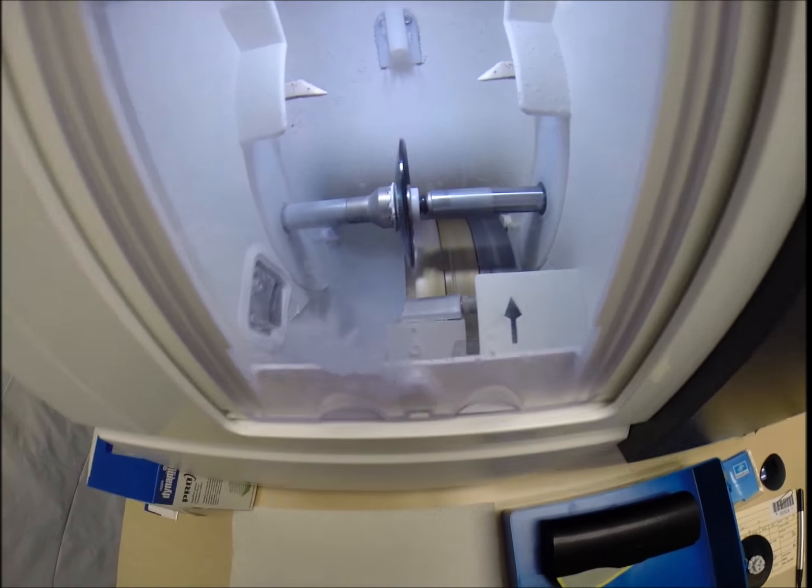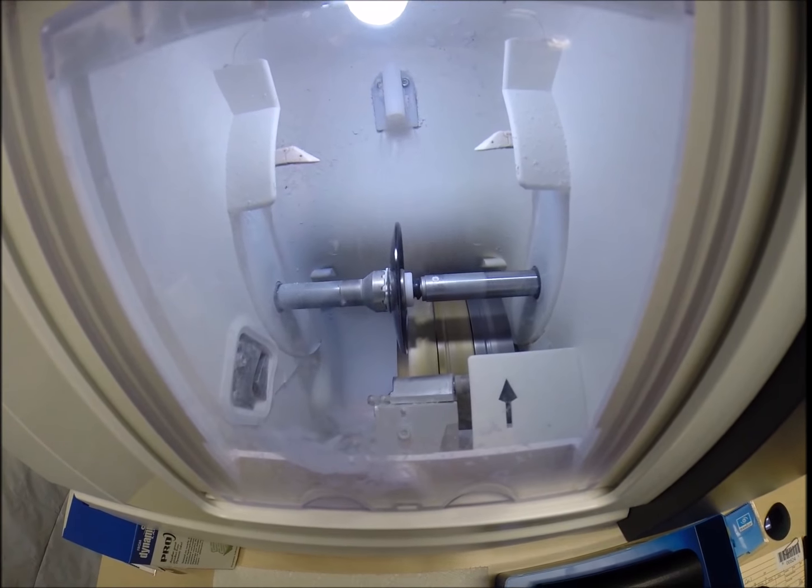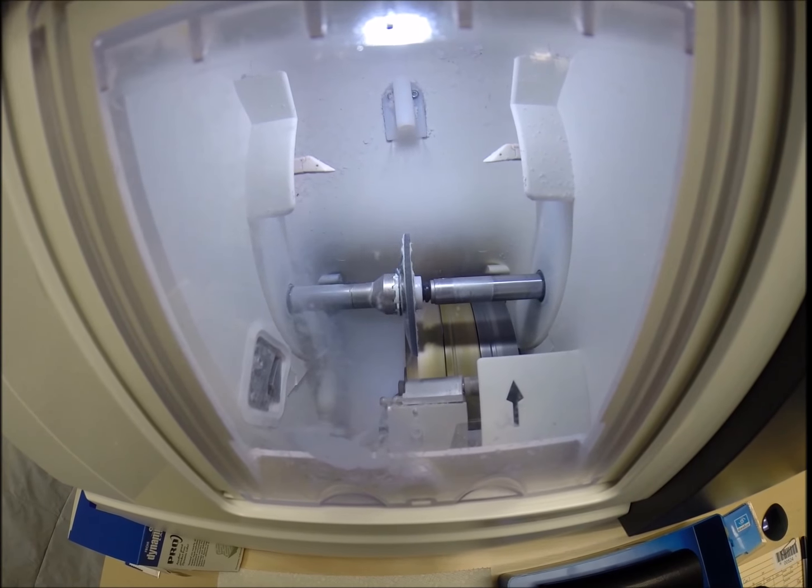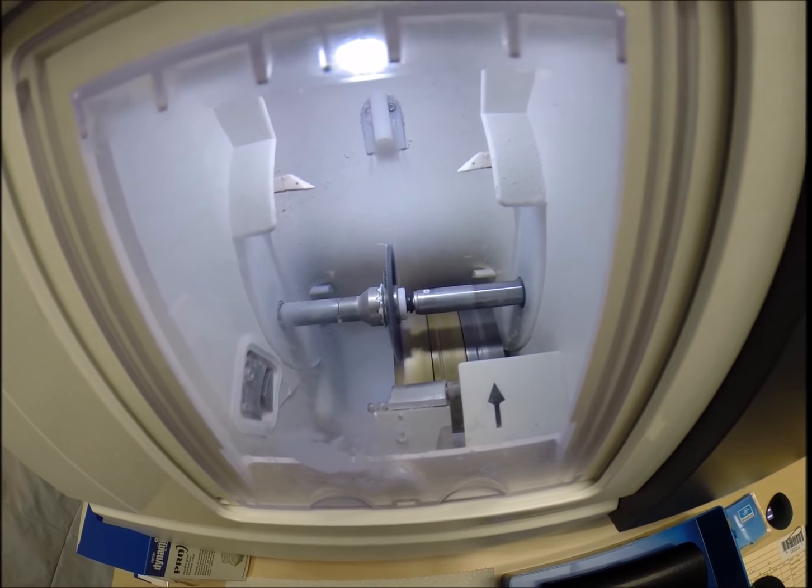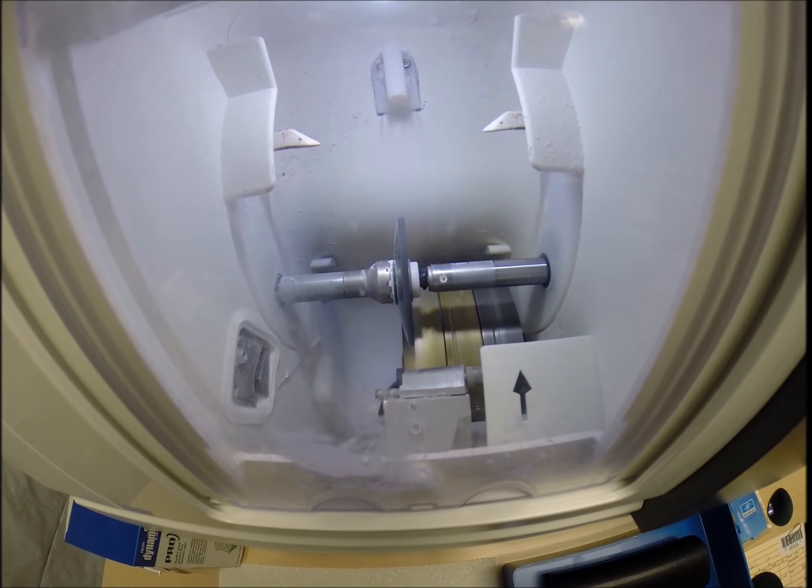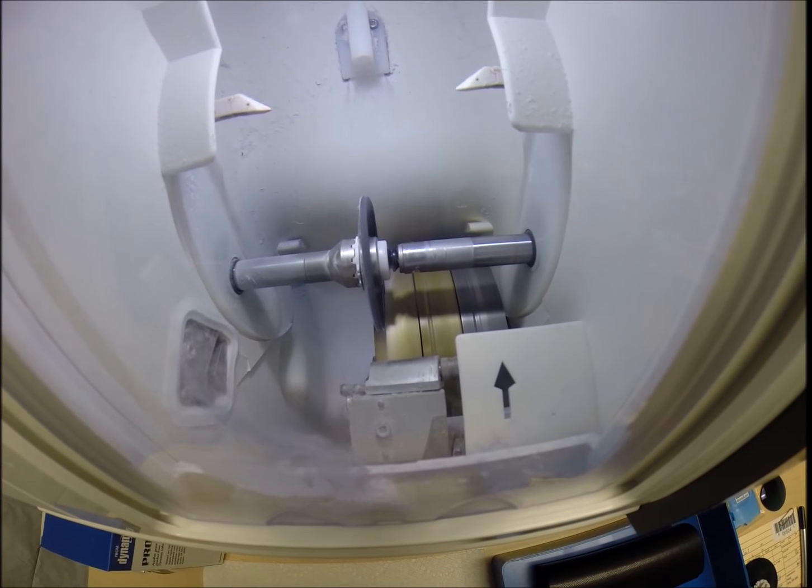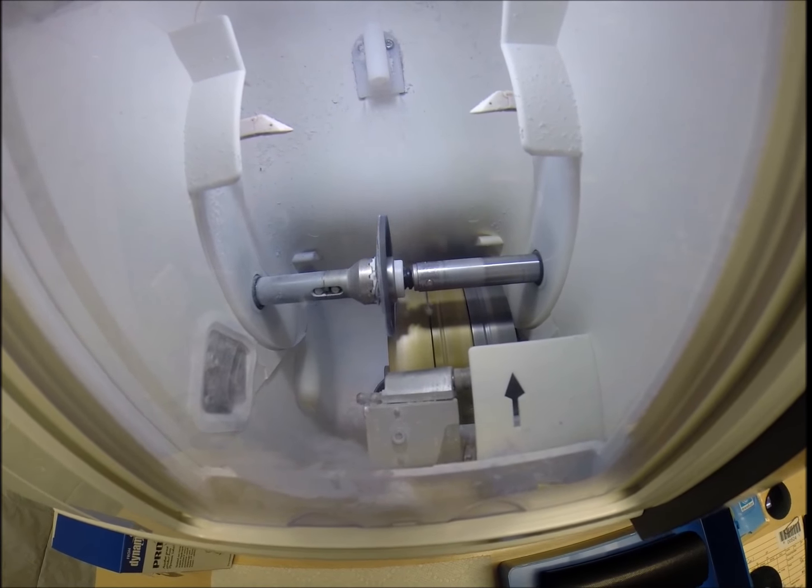Now, if you see light flickering in the background, that is water there to catch the optical sawdust. Polycarbonate lenses cut dry where plastic, hi-index, and trivex cut wet. Water will spray onto the lens for the last 20 seconds of the cutting cycle just to wash away any optical debris that you see beginning to form on the lens now, even though it seems to be flying off the back.